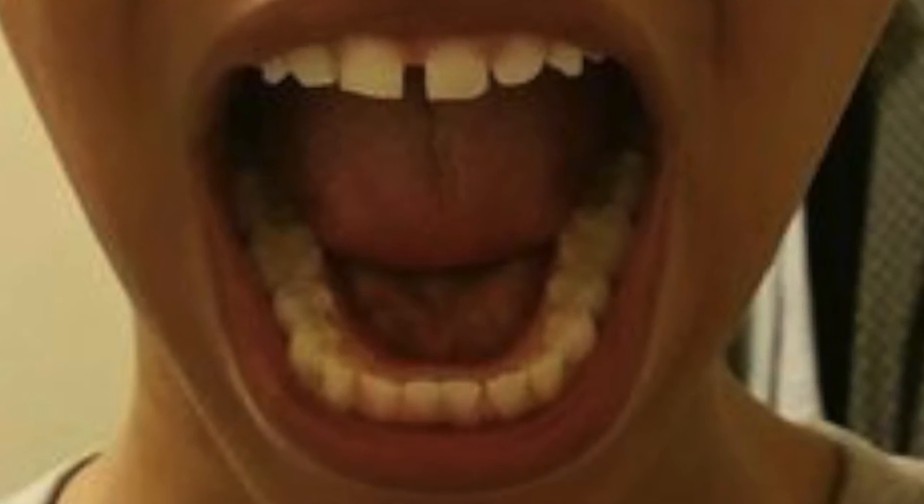I guess I'm done with the back teeth phase. Let me go ahead and show you how my teeth look like now. These are my teeth — I still have space here, basically everywhere. They did tell me the trays weren't going to fix my overbite, but I really don't care about that, I just wanted the spaces to go away. You can see the overbite, but honestly I don't care. You let me know if you see any difference — for me I might see a slight difference, like this one tooth right here is really pushed back; it was not like that before.